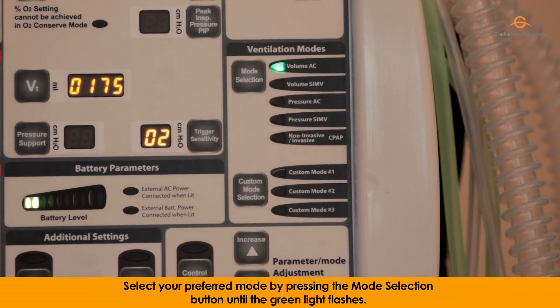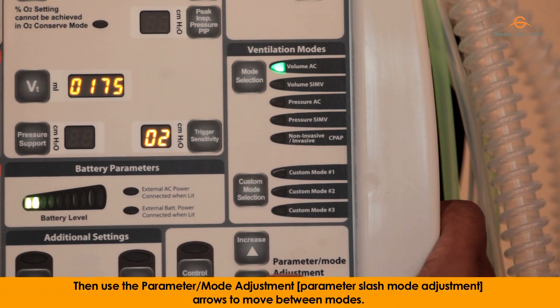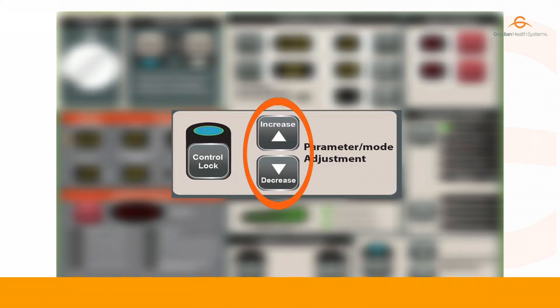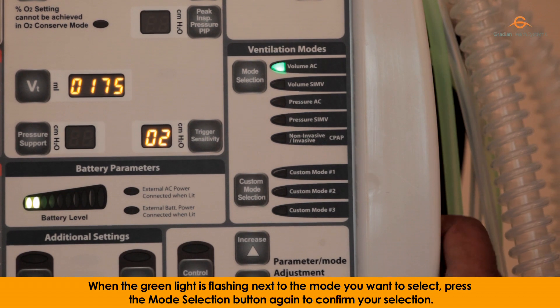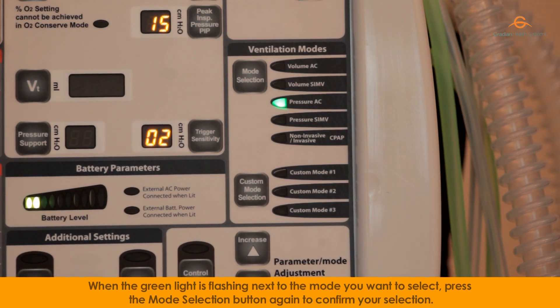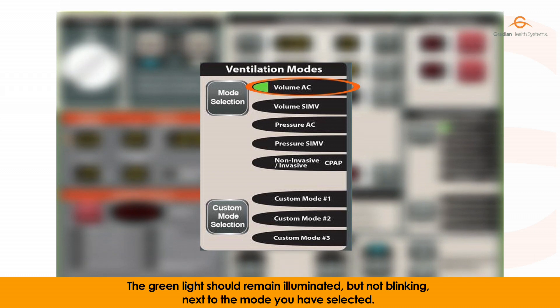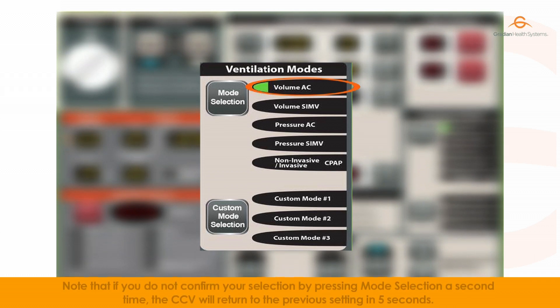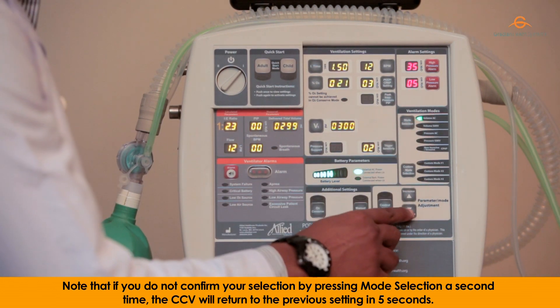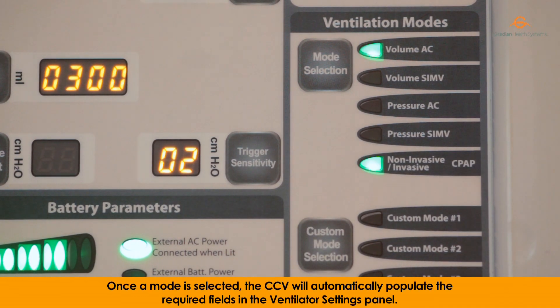Select your preferred mode by pressing the mode selection button until the green light flashes next to the mode you want to select. Press the mode selection button again to confirm your selection. Note that if you do not confirm your selection by pressing mode selection a second time, the CCV will return to the previous setting in 5 seconds.